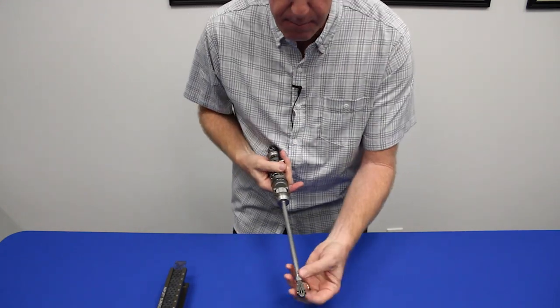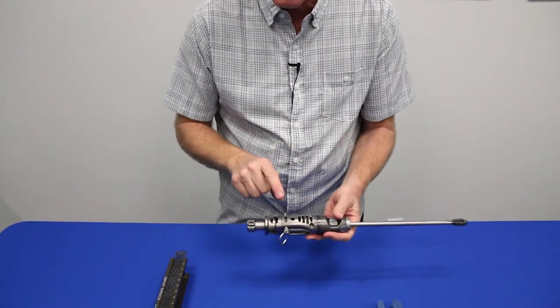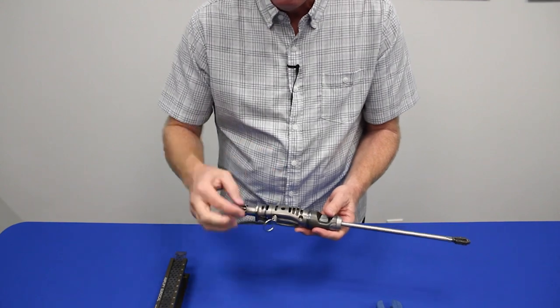You'll notice that the implant goes on a little bit floppy. That's what the handle is designed to do with the pin. We pull the pin.